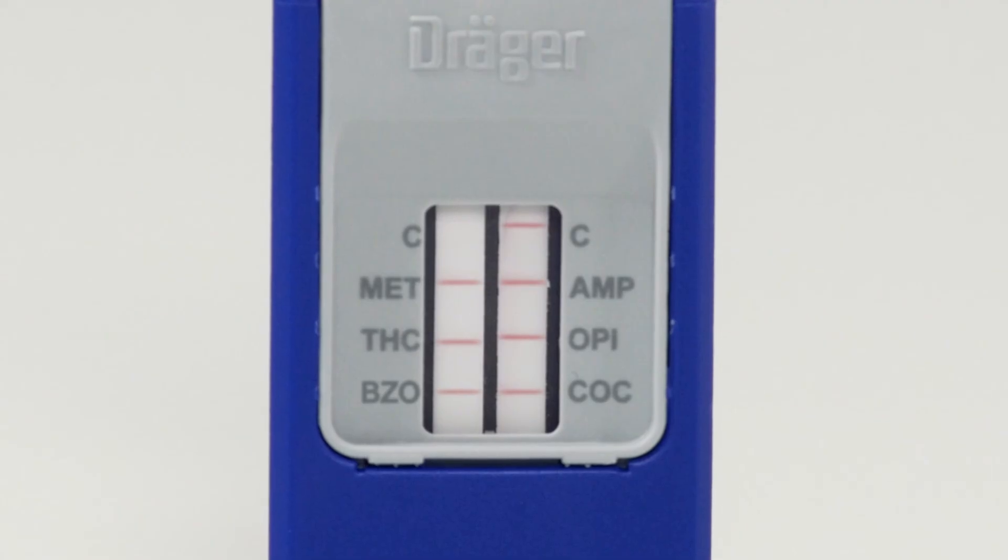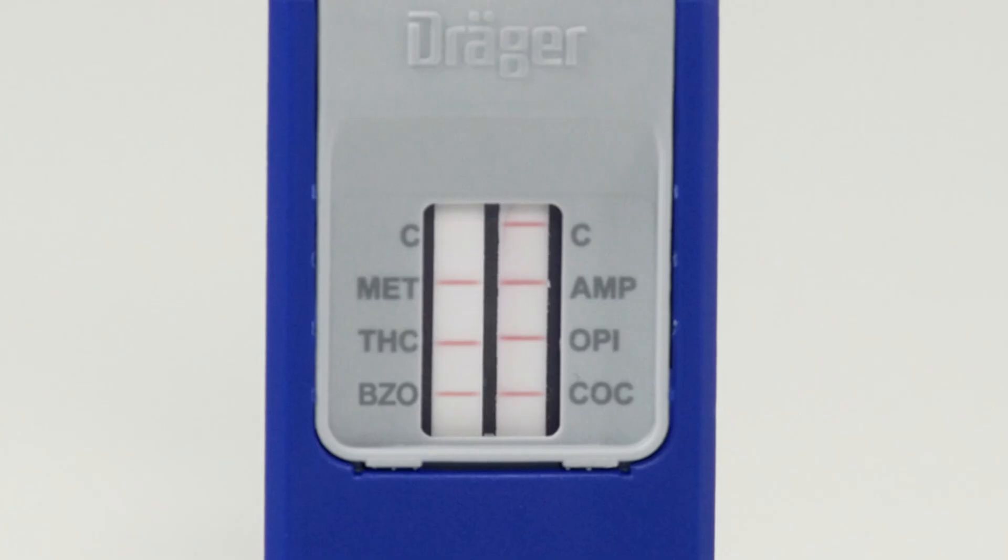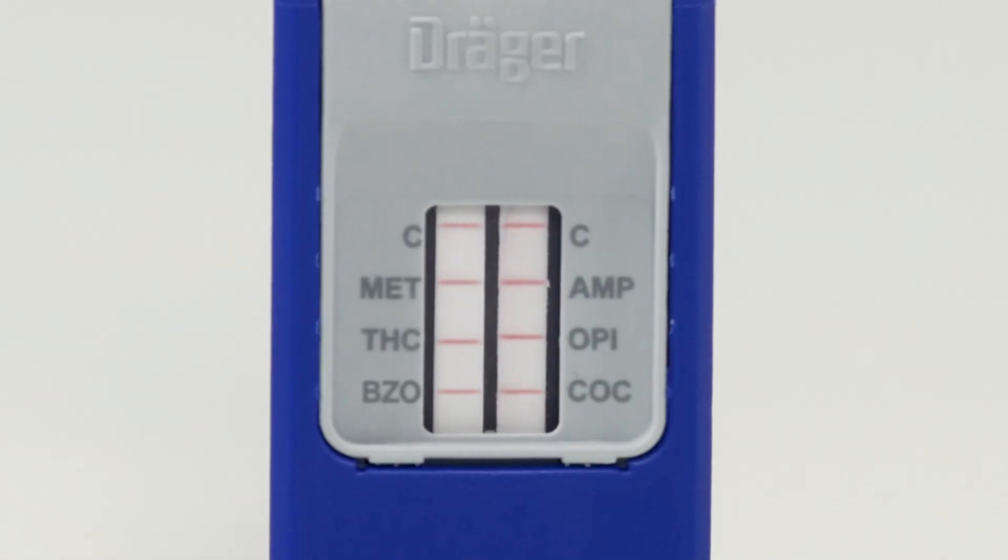Should one of the red control lines not be visible within the space of 10 minutes, the test is invalid. In our case, the test is negative.